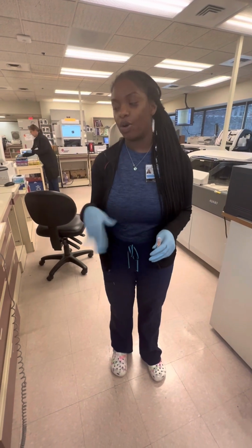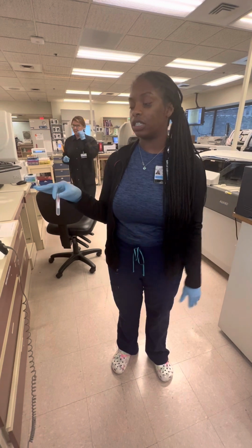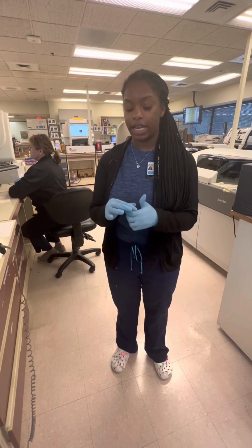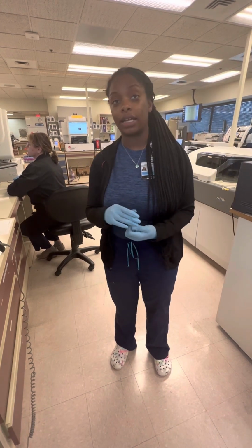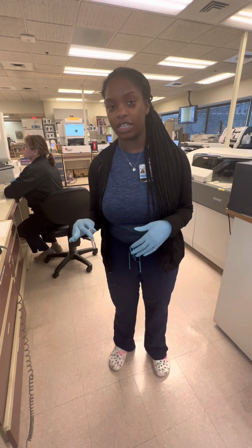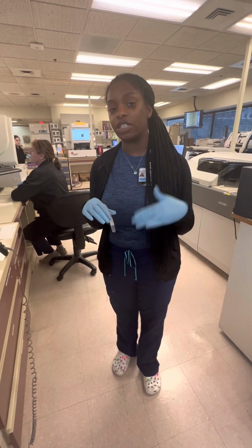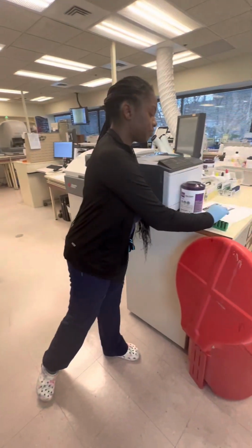As we talked about before, we're looking for TnI antigen in order to detect anything cardiovascular, myocardial specific. Any sample that has hemolysis or looks close to this, or is clotted, would not be something we want to use. Clotted samples could cause false positives, as we're looking for antigen immunocomplexes, correct? And hemolysis could falsely decrease our results since we're not having as many red blood cells present anymore.